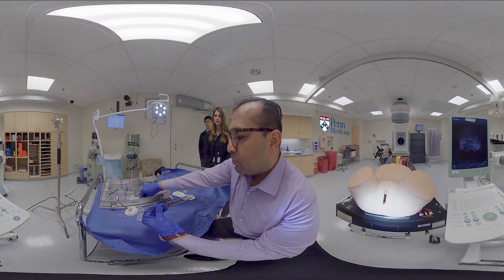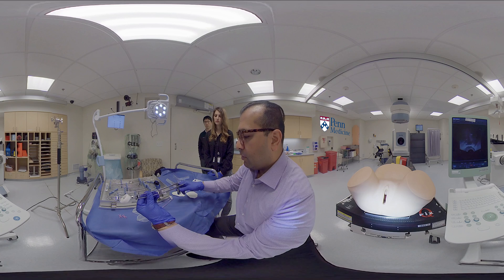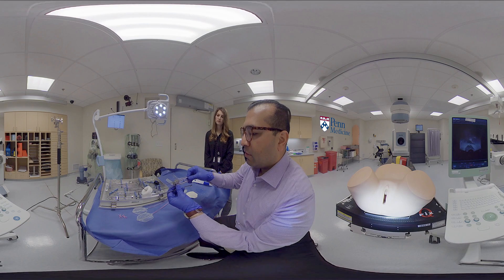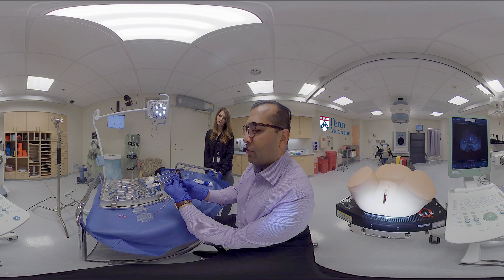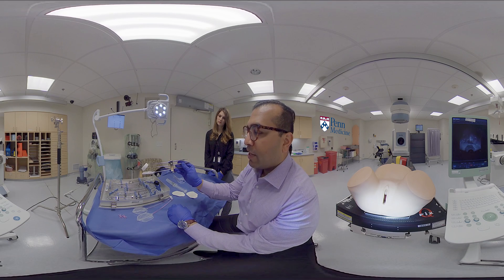This comes with an optional rectal retractor. To use the rectal retractor, it's slid over the assembled ring and tandem applicator. There is another side screw that can be rotated and locked into place, and the angle of retraction is adjusted using the bottom screw. This would be a fully assembled titanium ring and tandem applicator.